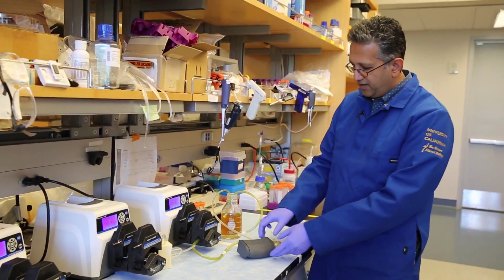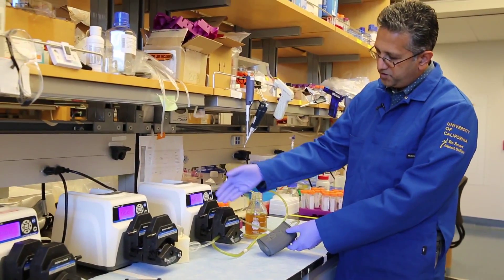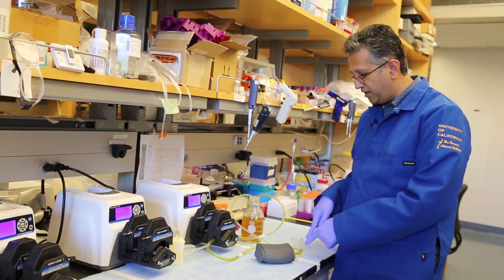This is our prototype model. It's got two components. It's got a filtration component that filters blood — here's our mock blood — and then cleans it out and provides what would be urine in this little container.